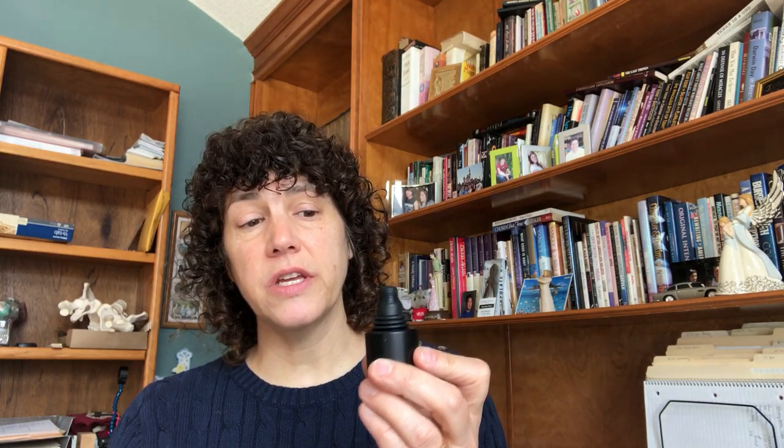So let's look at a few examples. This joystick here, this mini proportional, is from Stealth Products, and it is called their PMP or Precision Mini Proportional. One unique thing about this is that it has this gasket here — it's completely sealed, and that helps avoid anything getting in there like moisture, dirt, or secretions that could damage it and perhaps result in this breaking. So if that's an issue for a client, you might want to look for one that is completely sealed. This comes in a version that plugs into a standard 9-pin connection on a power chair, and there's also a version that plugs into the iDrive system that Stealth offers, which provides some additional programming.